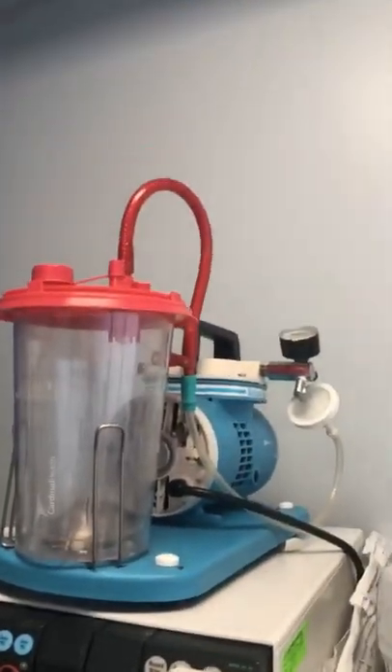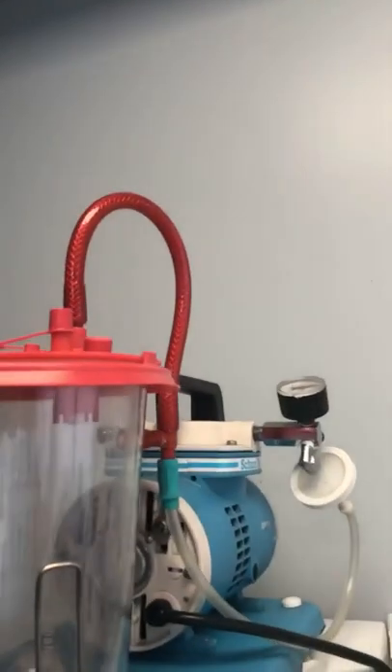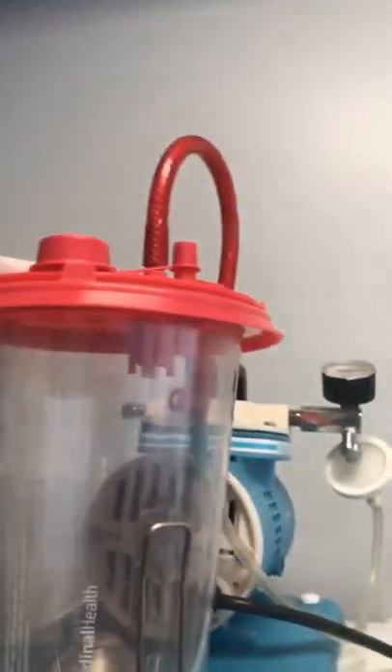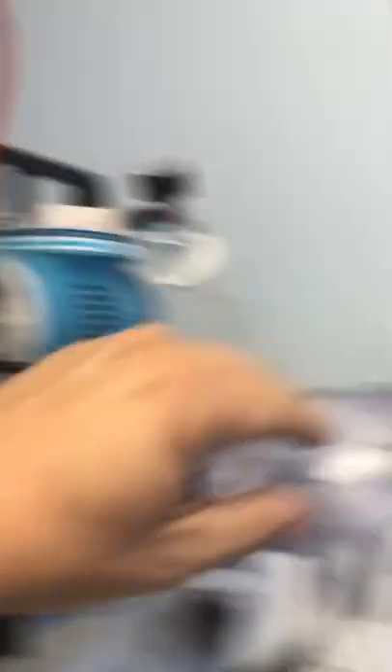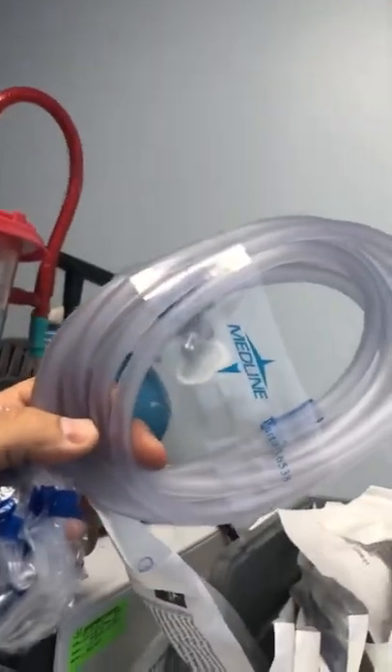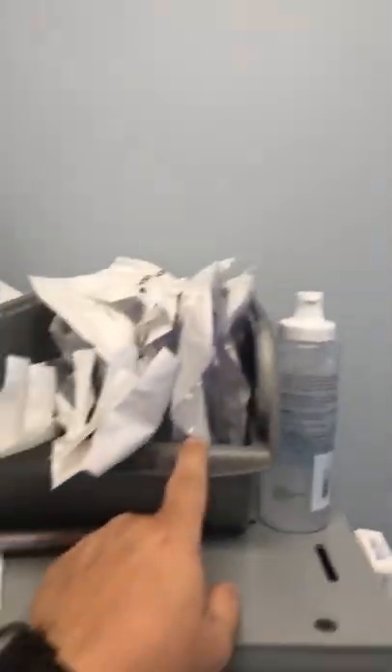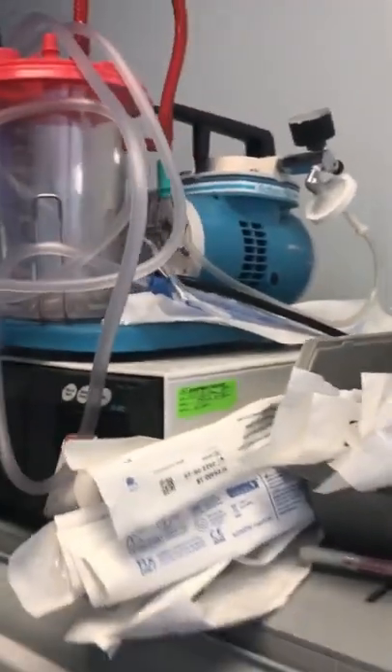While that's re-spooling, what I do is typically start at the top of my machine and work my way down in a cross kind of pattern. Up here you can notice I have my suction — turn it on, it's working, it's got good suction. I do have to put a hose on there. It's always important to have some redundancy built in, so I have extra tubing and hoses here for suction, and Yankauer suction is here ready at my disposal at any given time.